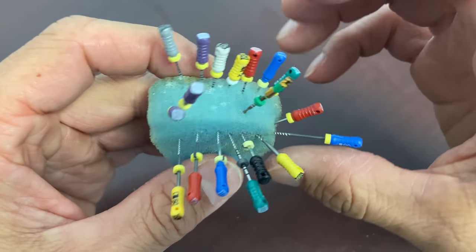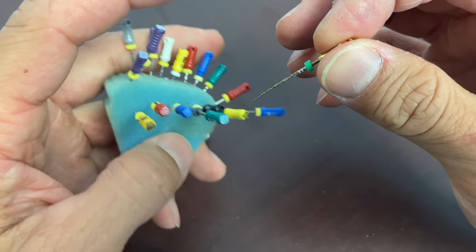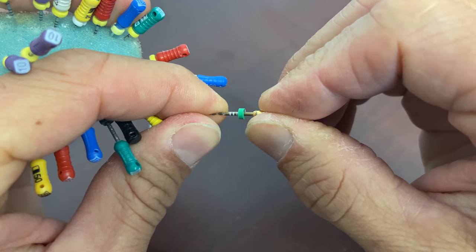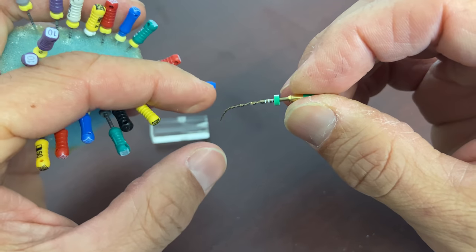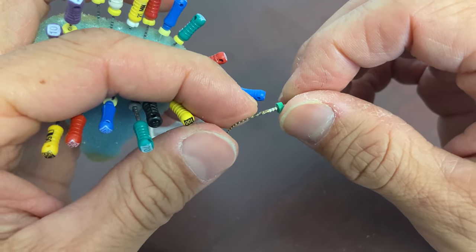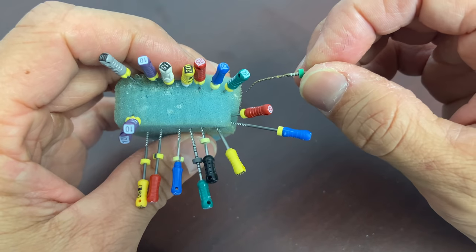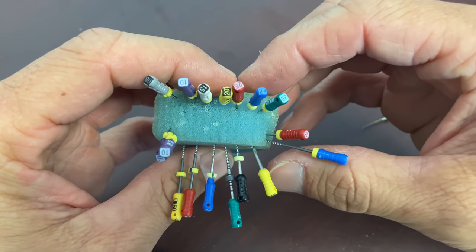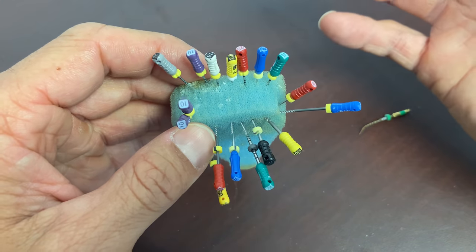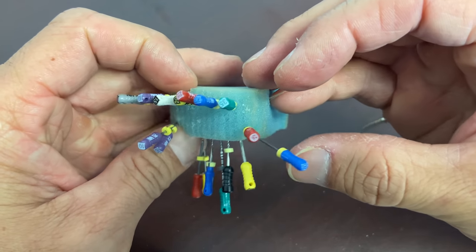In 2022 we've got the beautiful technology of nickel titanium — it can go around in circles and keep its shape, which is amazing. We're very fortunate. I started out with hand files, probably all of us did at some point in dental school, but nickel titanium has really changed the game.